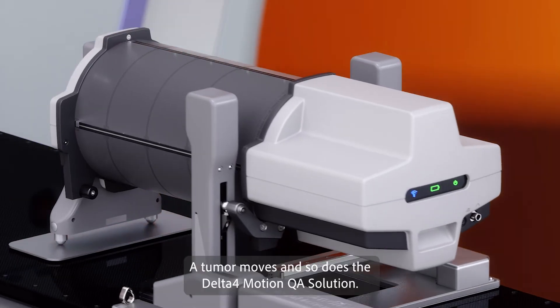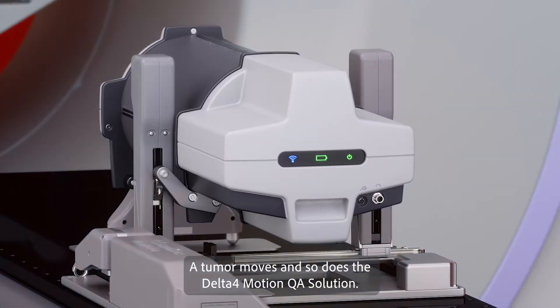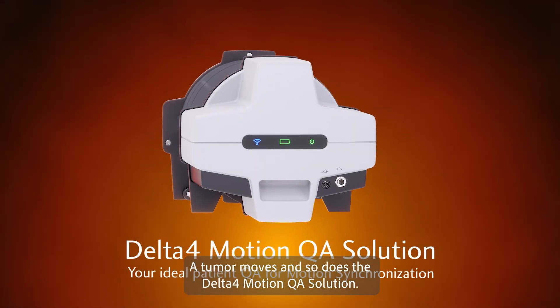A tumor moves, and so does the Delta 4 motion QA solution.